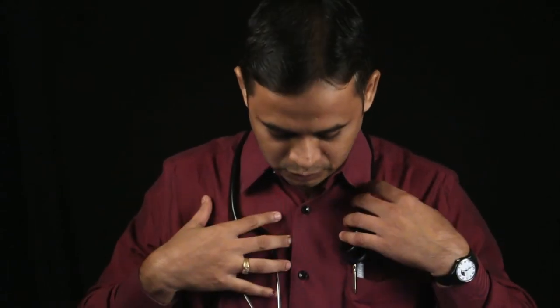The stethoscope is helpful for four main reasons. The first use is to listen to breath sounds — bronchial, vesicular, bronchovesicular, and tracheal — whether they are present, absent, or any adventitious sounds are present. Auscultation is done on the anterior, lateral, and posterior sides of the chest wall.